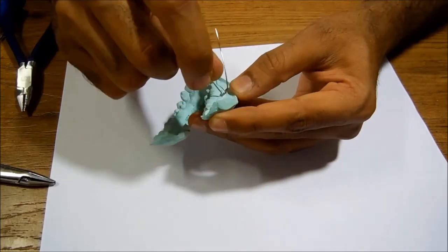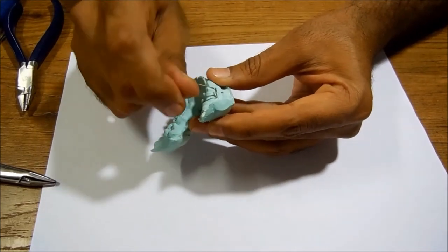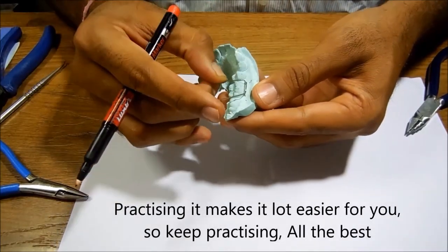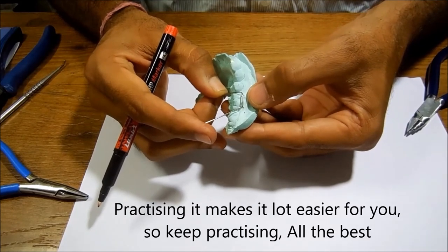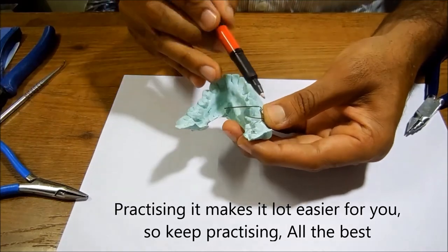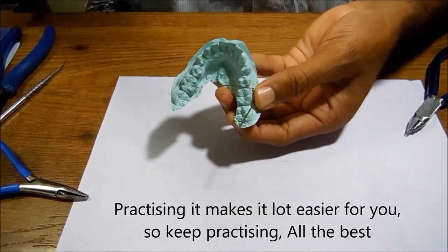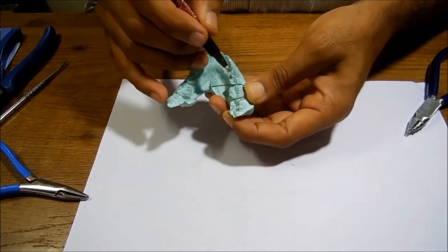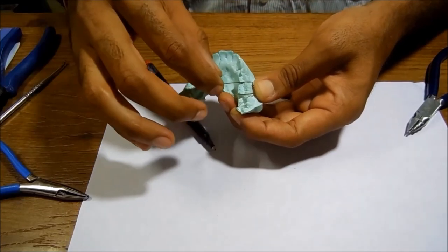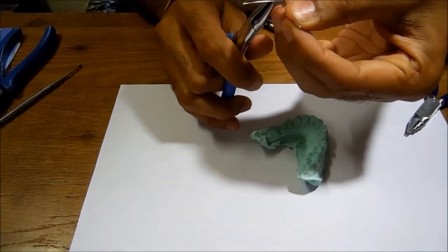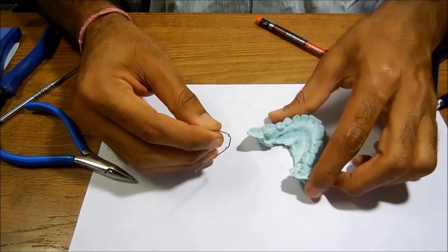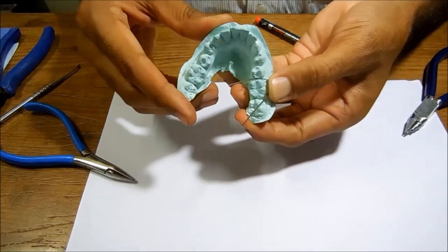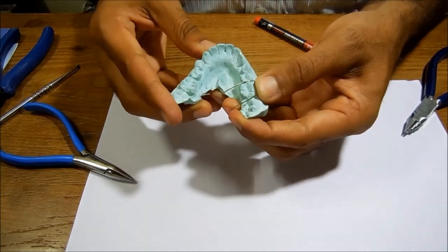Remember, this angle will always remain 45 degrees. Now starting with the adaptation part: keeping this angle at 45 degrees and making my arrowheads contact the gingiva at the desired location, I start adapting one of the tag arms. This has to be done when you see the cast occlusally. If you can see, I have adapted this arm, but my this arm is going way outside the contact area, so I'll make a tag here and bend it little inwards using my half round plier. A half round plier always makes your bendings a lot easier.